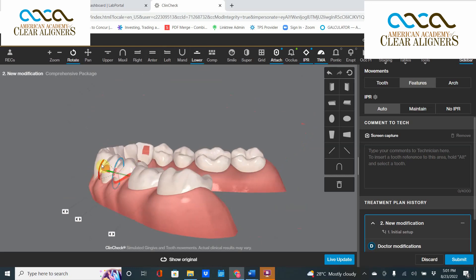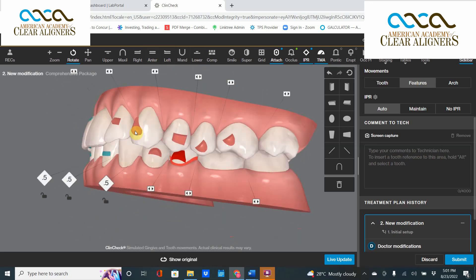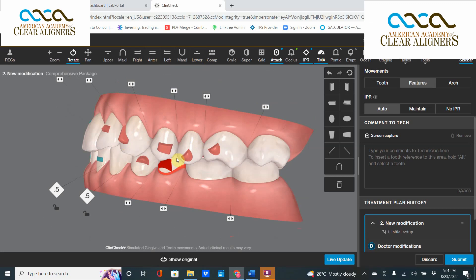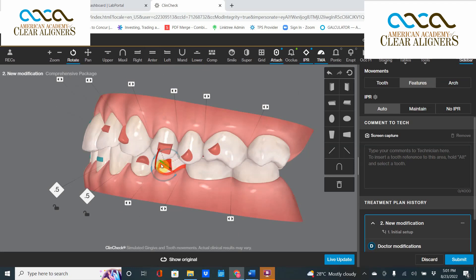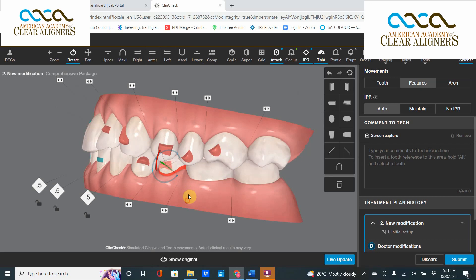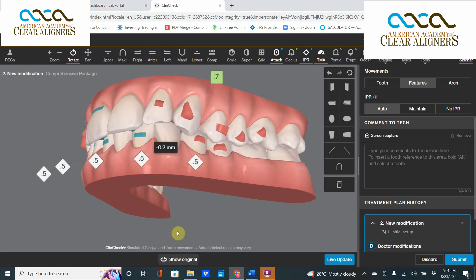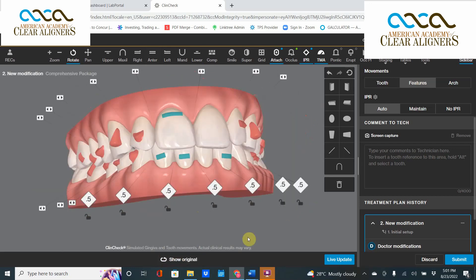Sometimes I can try and bevel it — you hit it and you can kind of bevel it like that. Let's see if that will work. I don't think it likes it. Maybe we can move it in a little bit. There we go — squish it in. Now she's good.